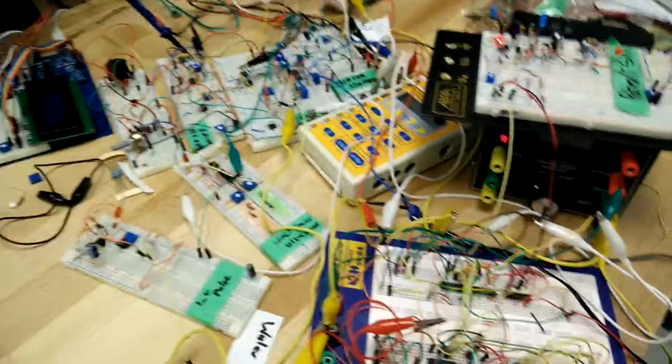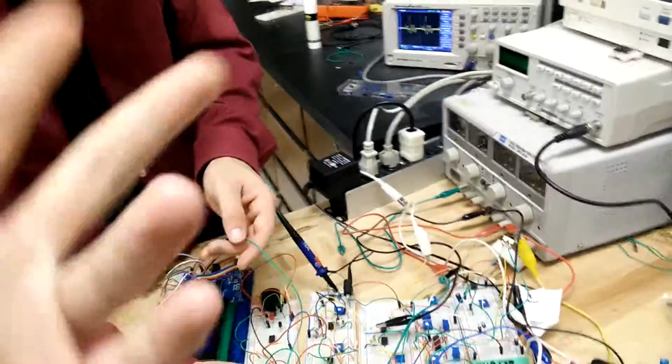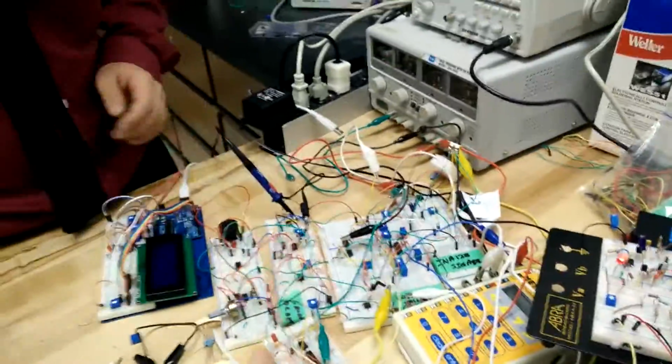The auto zero detector is basically to make sure that you don't have your AC signal or your pulse signal riding on a DC, which would offset it, so you would be too high or too low, and it could interfere with multiple signals because we have multiple leads going in.